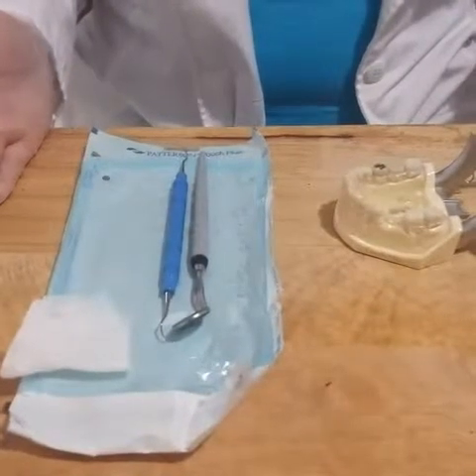Today we're going to be covering a clinical skill, the use of a universal curet, specifically the Columbia 13/14. We are going to be using assessment strokes and activation strokes in order to learn how to angulate the instrument to the tooth. All necessary materials.